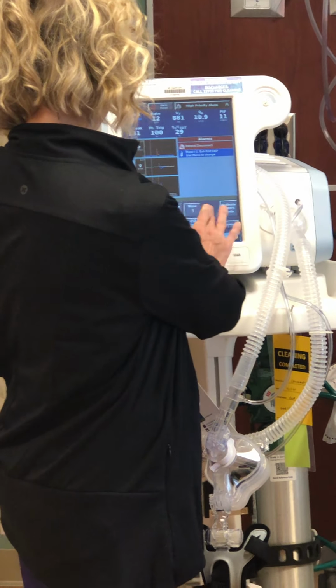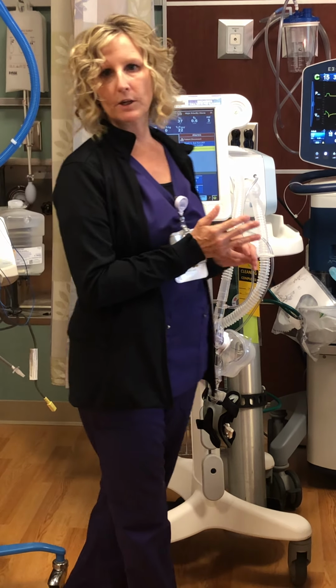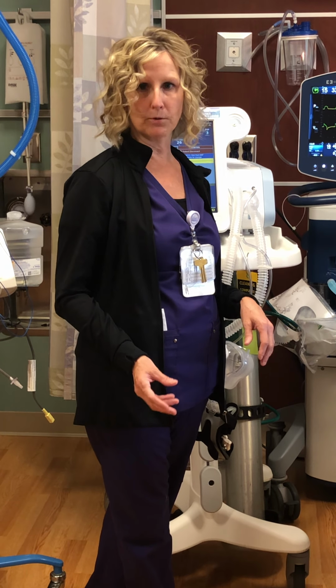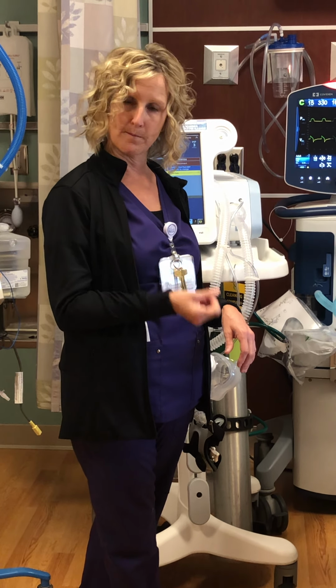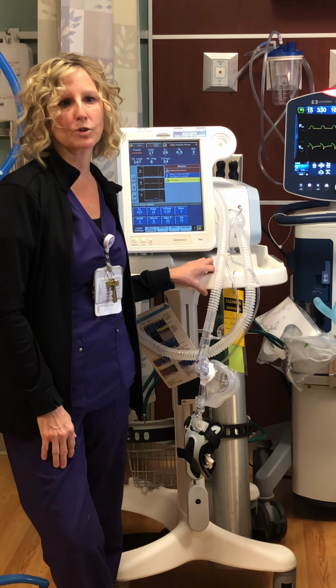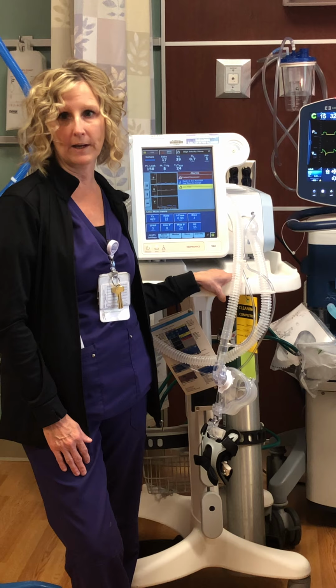So this is for patients that maybe have recently been extubated and they require more support than a BiPAP patient. The other thing to remember with BiPAP and AVAPS both, we never can use it on patients that are double restraint. They have to be able to at least lift one hand to remove the mask. And also obtunded patients, if they're not able to have the faculties or the mental status to be able to take that mask off, we cannot use it.